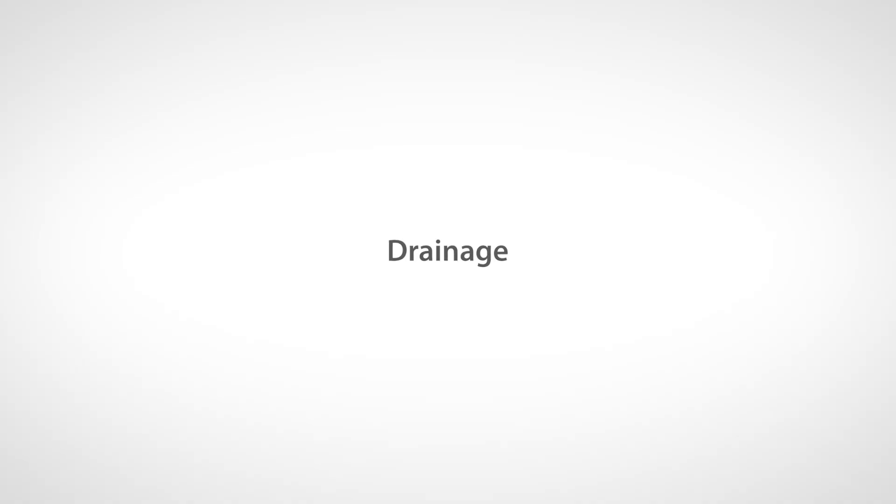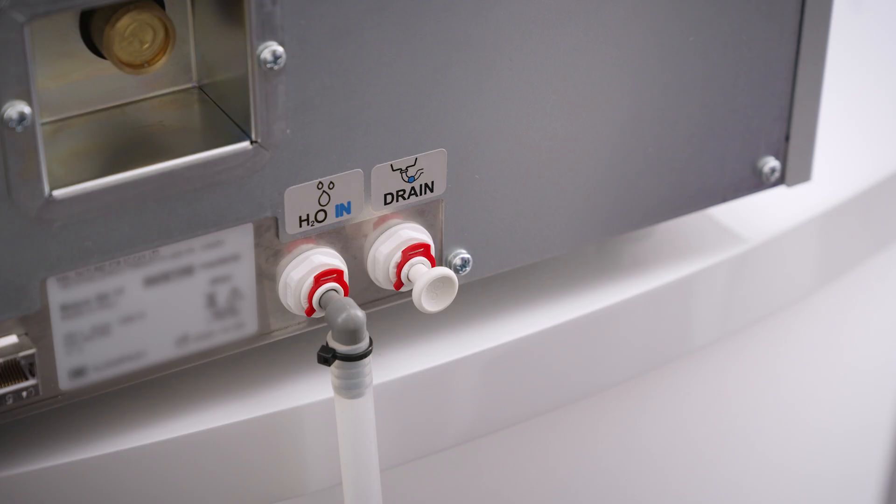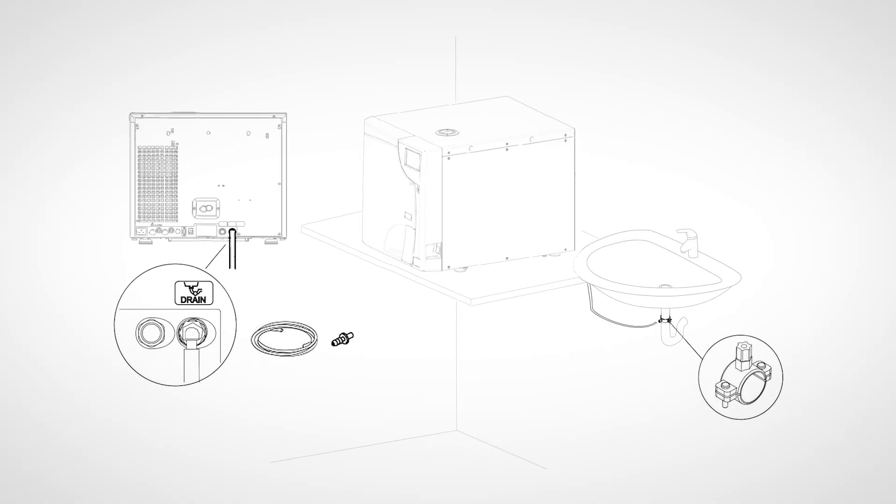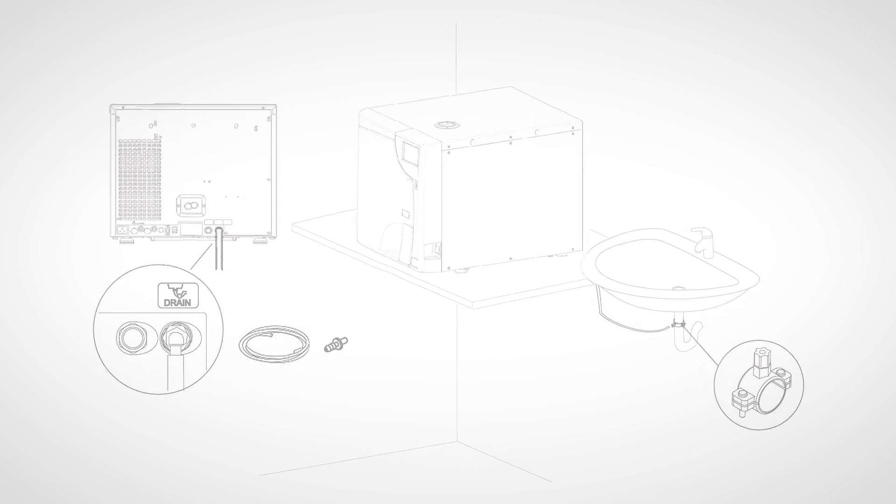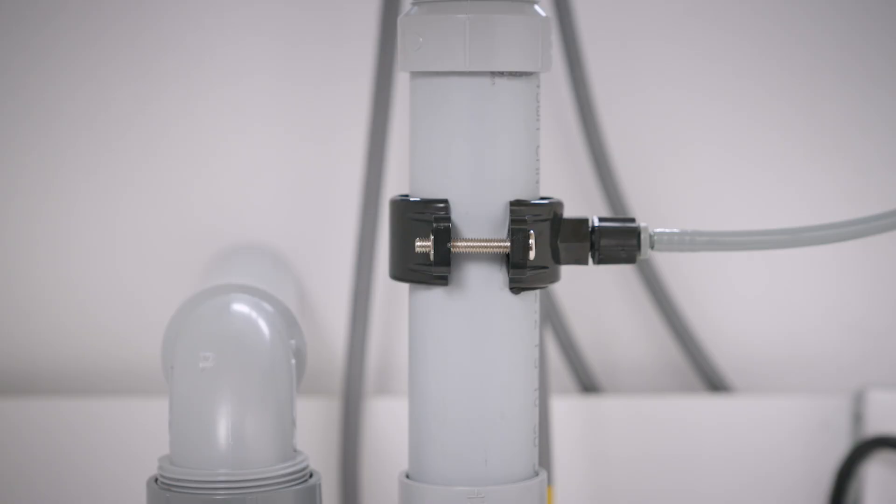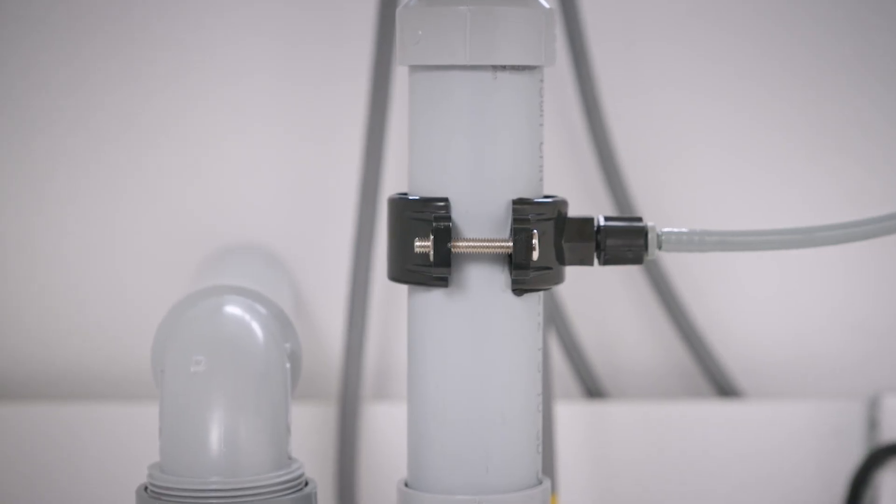Draining wastewater can be done in two ways. The recommended draining setup for the Bravo G4 is to connect the exhaust hose directly to a drain using the direct-to-drain kit supplied with your unit. This will prevent accidental waste bottle overflow. This is also the best draining option for when you are using an automatic filling system.